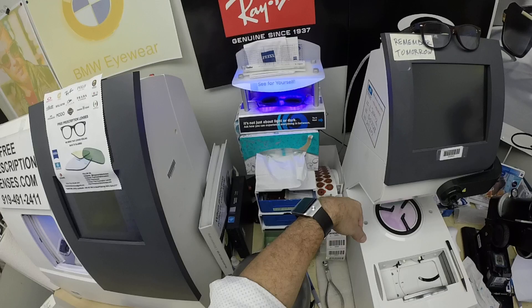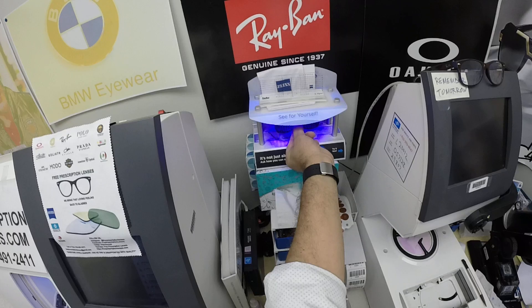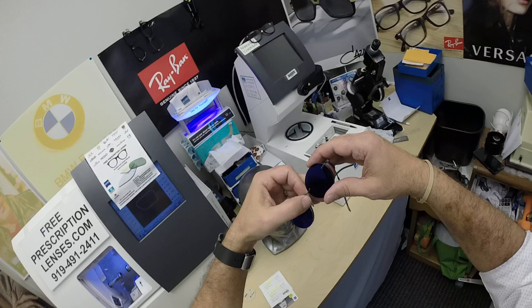Now everyone pay attention: all photochromic lenses will get dark on day one and continue to darken every day for the first couple of weeks they're exposed to the sun. After that, they'll work for years at maximum performance. The only time they won't work perfectly is if you're behind the windshield of a car — your windshield absorbs the sun's ultraviolet rays, which would otherwise cause your dashboard to crack or your upholstery to rot. And that's why they won't turn dark in a car.